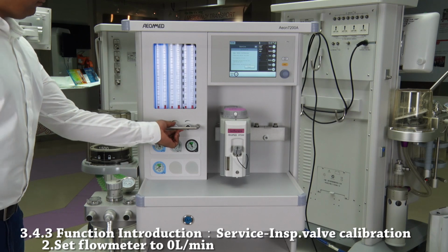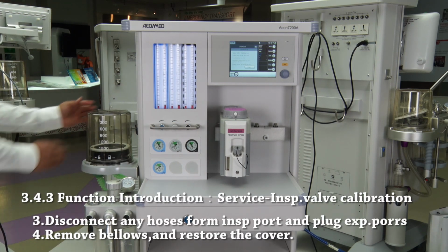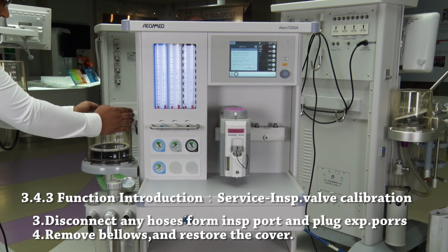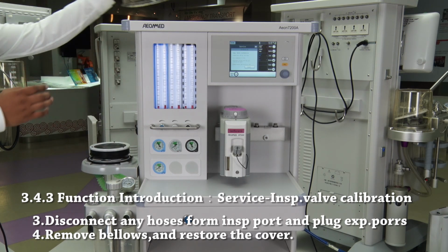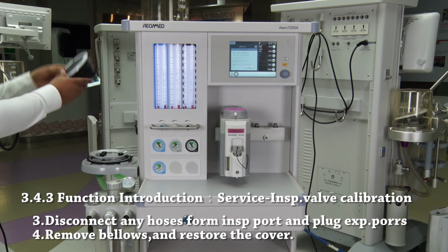Step 2. Set all flow meters to 0 liter per minute. Step 3. Disconnect any hoses from inspiratory port and make sure to plug the expiratory port. Step 4. Remove bellows and restore the cover.